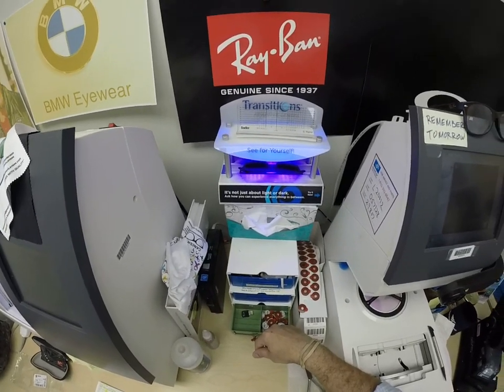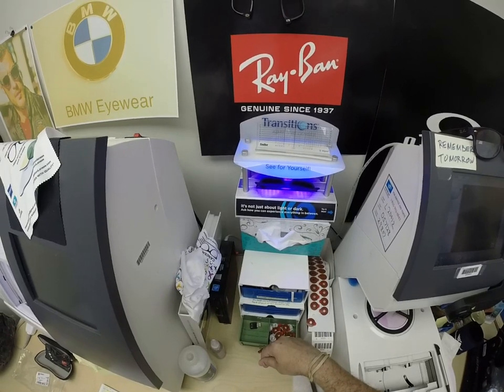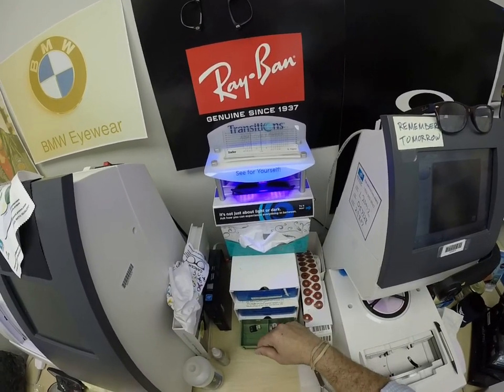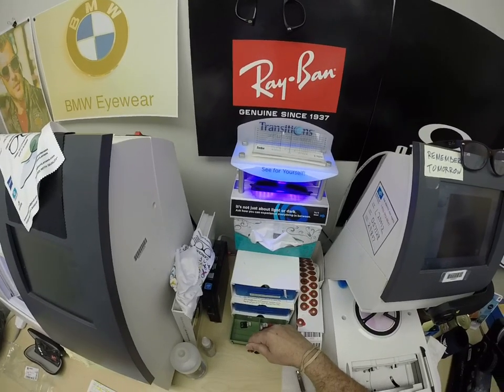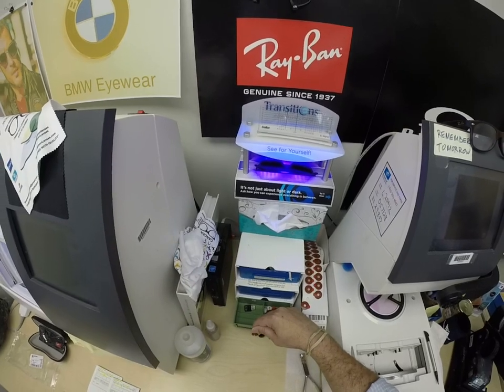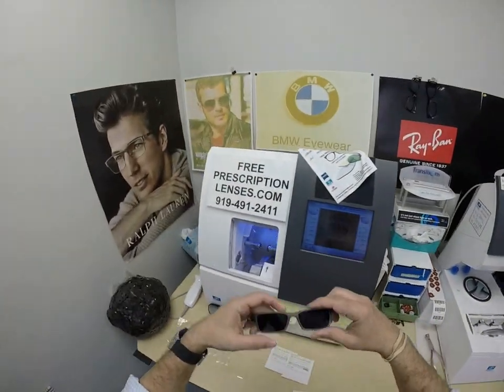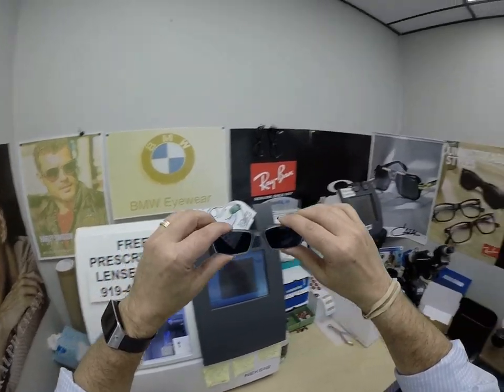This is important — Aaron and everyone else, pay attention. All photochromic lenses will get dark on day one and continue to darken every day for the first couple of weeks, and then they'll be at their maximum performance. The only time they're not at maximum is if you're behind the windshield of a car. Your windshield absorbs the sun's harmful ultraviolet rays that would cause your dashboard to crack from sitting in the sun all day — that's why they don't turn dark in a car. These Photofusion Extra Gray will get 30 to 50% dark behind a windshield.